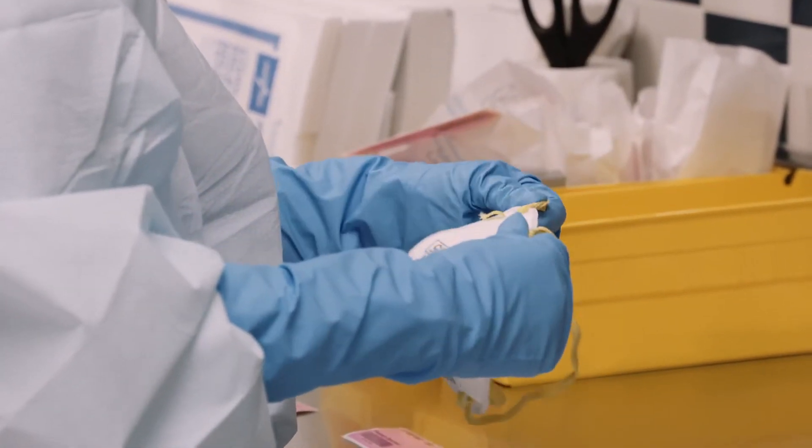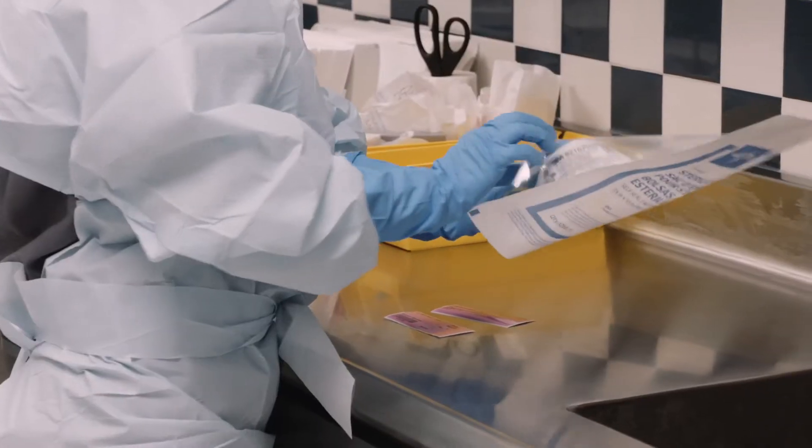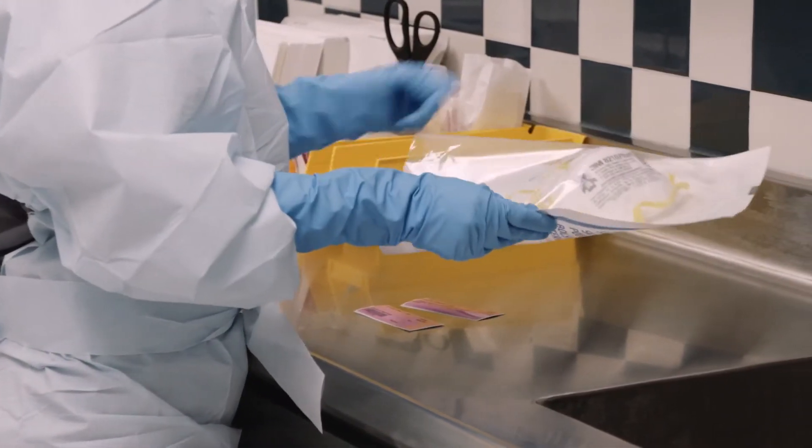If a mask is soiled, coated with makeup, damp or damaged, it's thrown out. If it's acceptable for reuse, it's packaged in a special pouch and sent to the processing room.